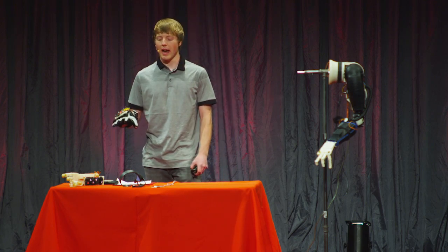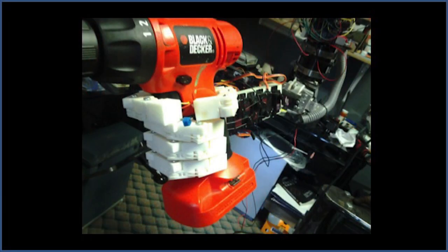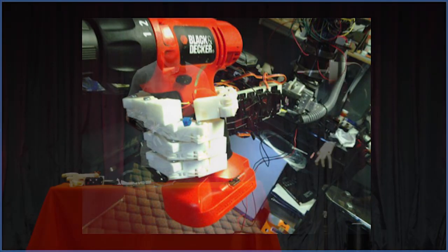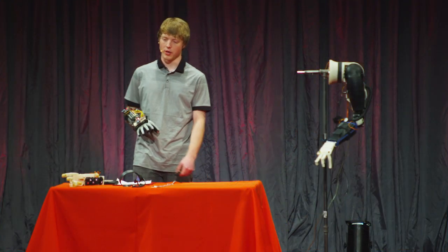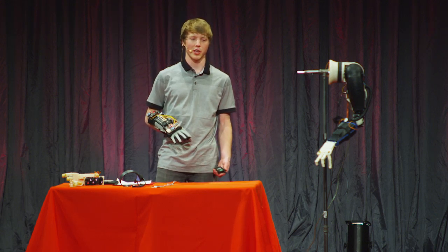One problem was finding a compromise between strength and cost for the motors. There are so many different technologies out there. I ended up going with a geared DC motor to power the shoulder, and it was a challenge finding a motor that could even lift itself up.